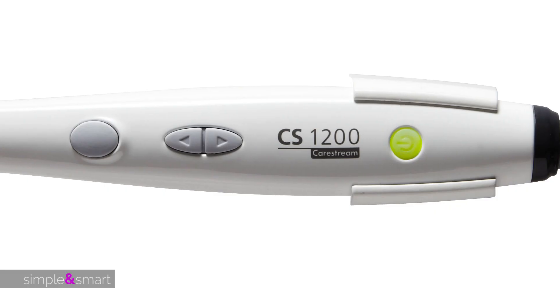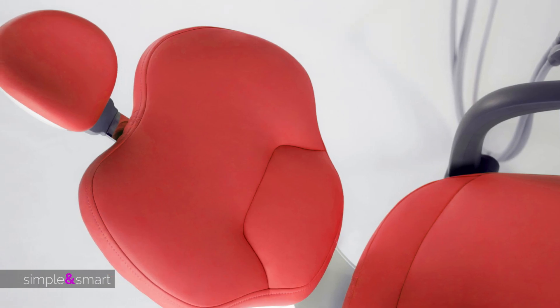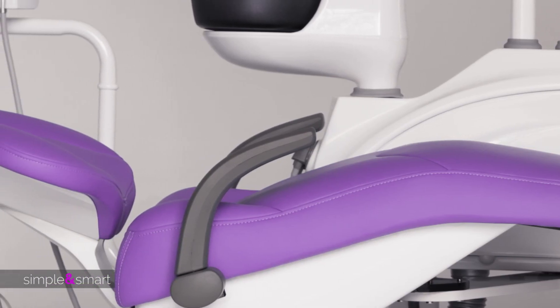Upgrade your unit with a monitor and camera or install our touchscreen PC panel. The color choices can get you in trouble — you can choose the best texture and tonality with a chart selection of more than 200 different colors.